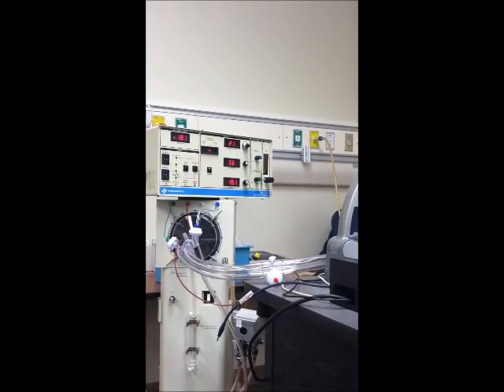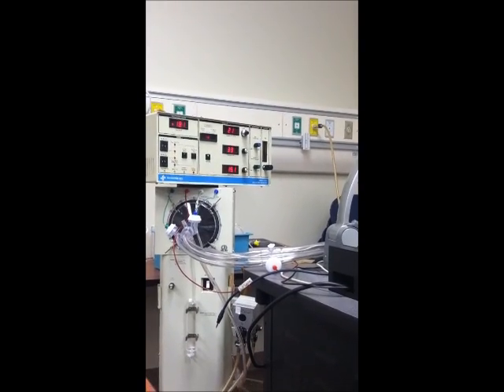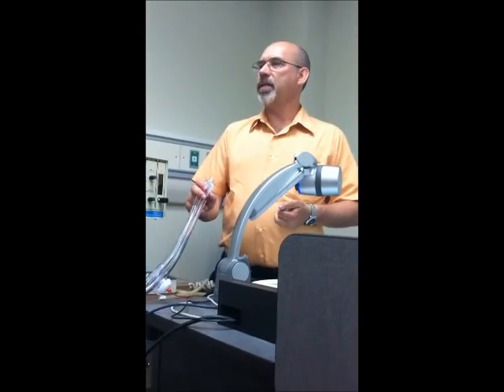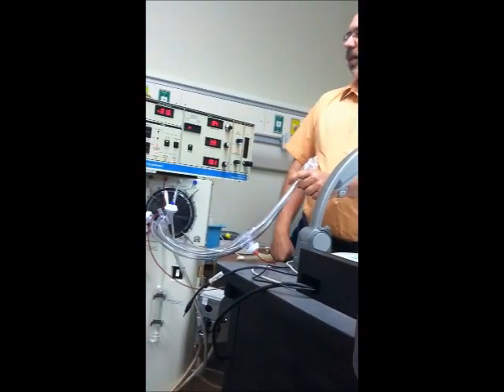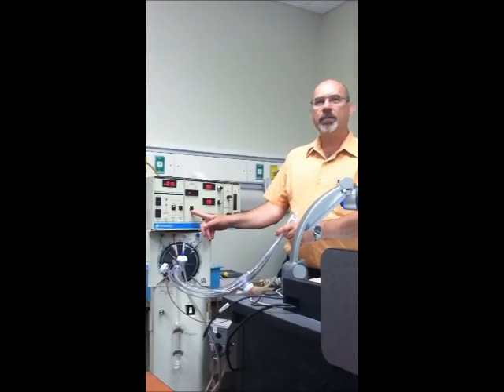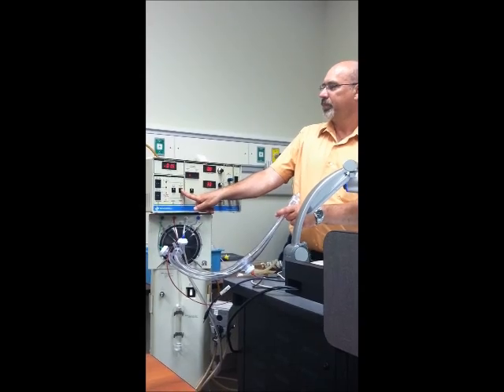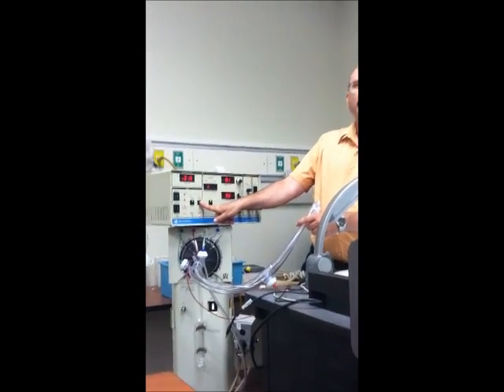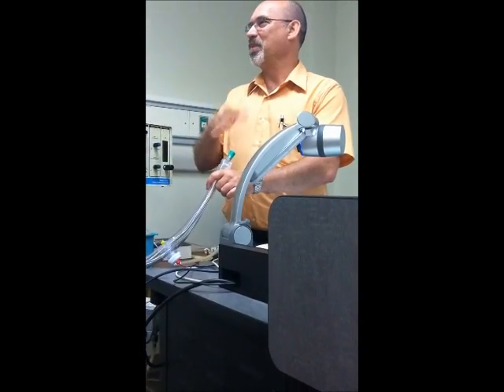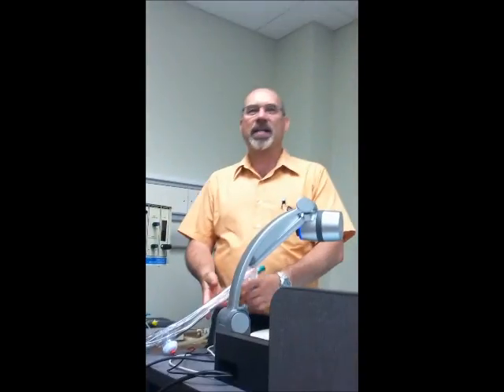All right, and then, is it really this simple for this short? Yep. Restart the ventilator after patient disconnect. So, the patient gets disconnected, really obnoxious alarm, so I usually silence that. Okay, still green. It's not going on. Gotta connect. Okay. I like that cool breeze blowing on my face, so I didn't want to put it on. If you don't fix the leak, it's not going to start back up, okay?